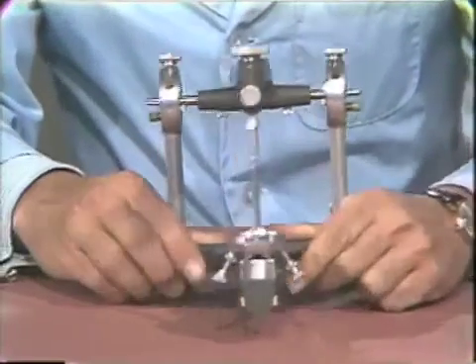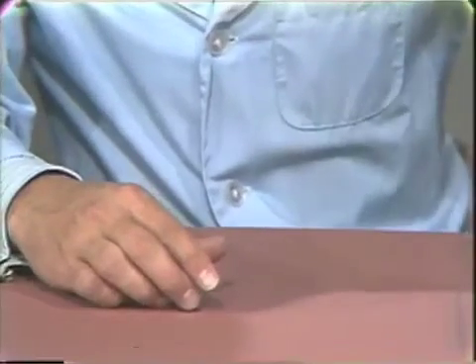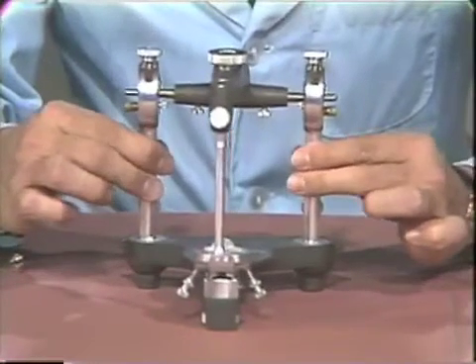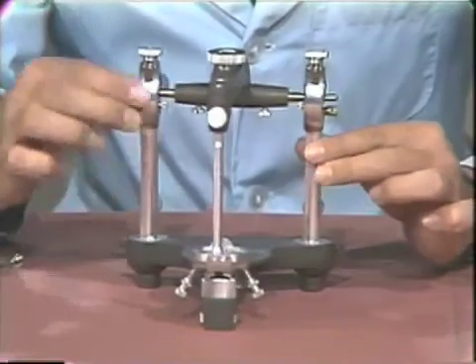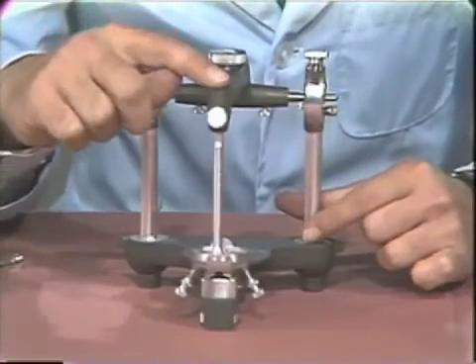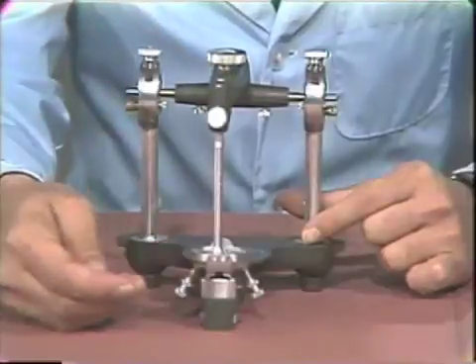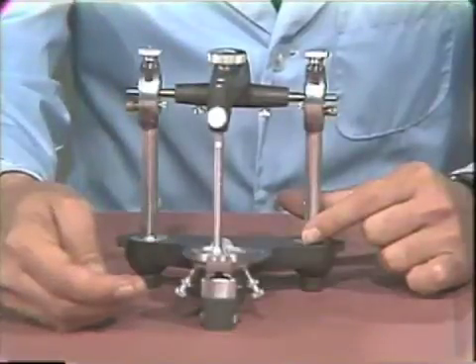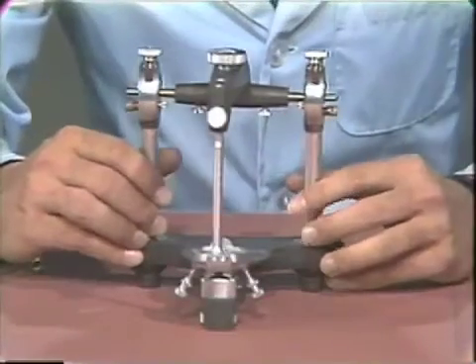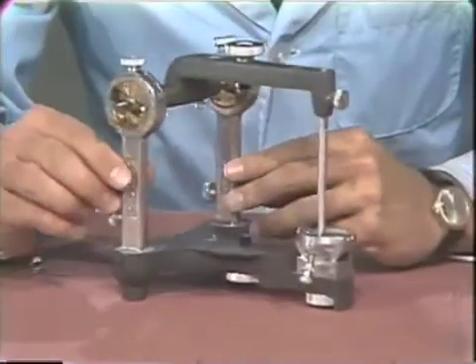Now we should consider an instrument that is out of alignment. The vertical axis is set at zero degrees, the incisal pin is flush with the top of the articulator, and the incisal table is set at zero degrees. We are first going to consider the effects of a mal-relationship in the condylar area.